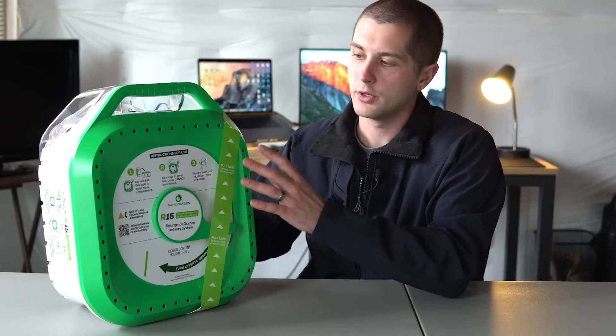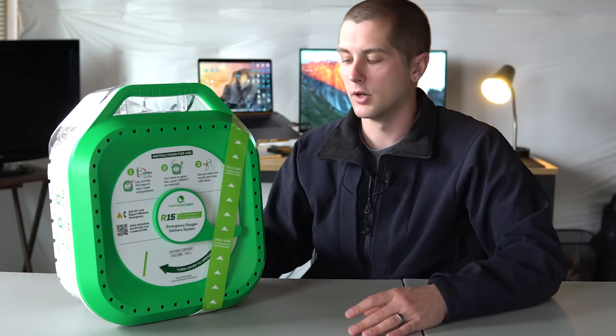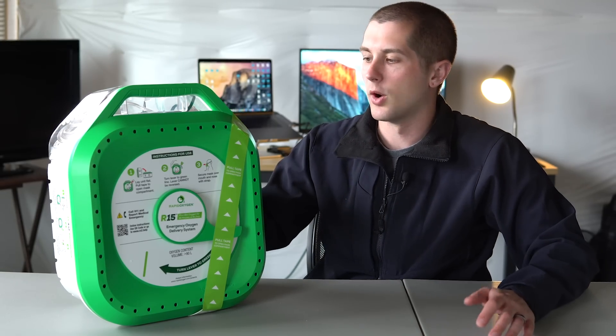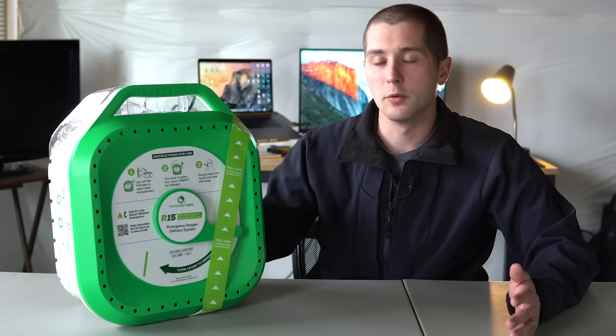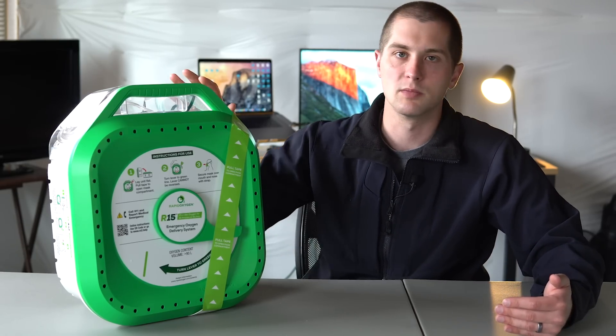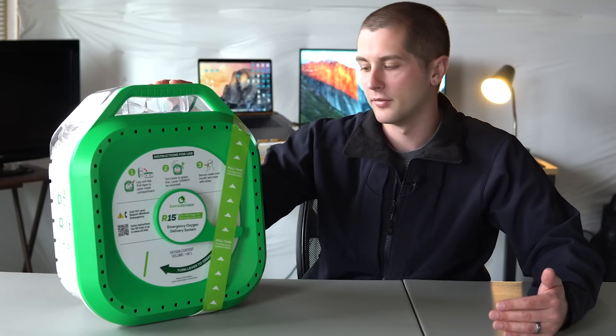All in all, I think this is a really cool device. I'm very excited to see where they go with this. Right now, you can just buy this unit here. They're working on making a mounting cage for it along with some other storage options. Their thought right now is this could be kept at like a front desk or something like that and then easily brought to whatever issue is happening in that building. You know, it's negatives are going to be at storage options. I would really love to be able to take this in my car and keep it with me. However, because it has such a narrow range between that 68 degrees and 75 degrees Fahrenheit, you know, I don't think I'm going to be able to keep it there. So I think that would be a really cool improvement for them to do in the future. But right now, I think this is more a either at home or at office kind of device.